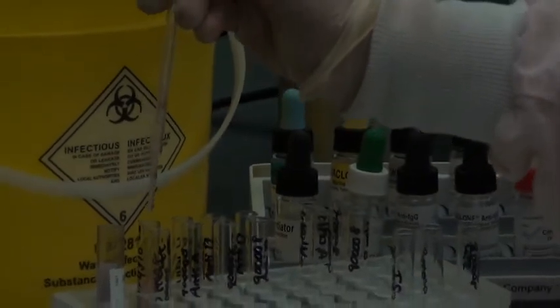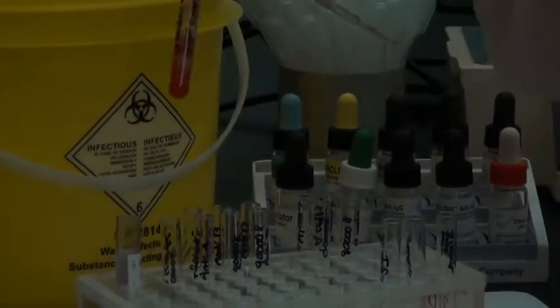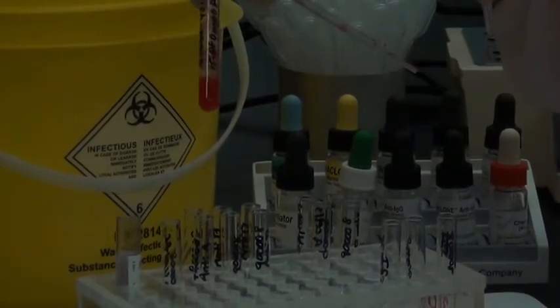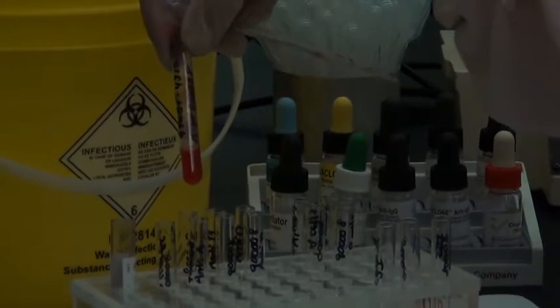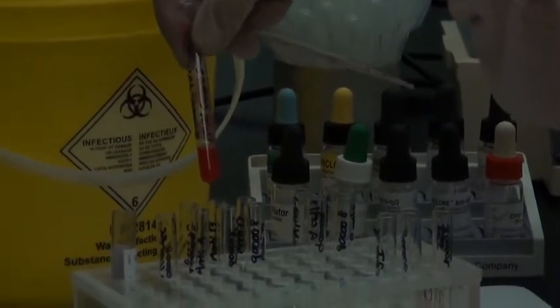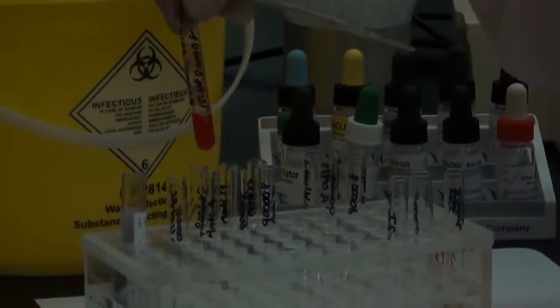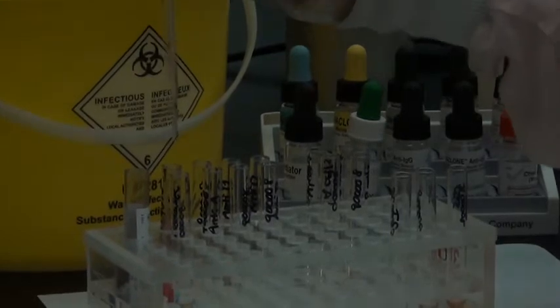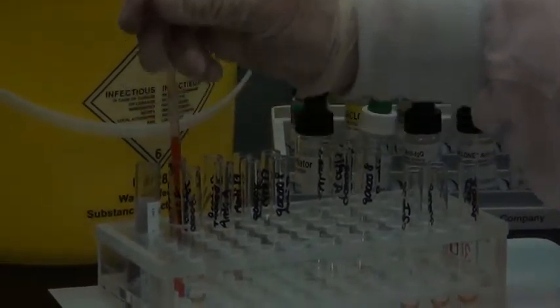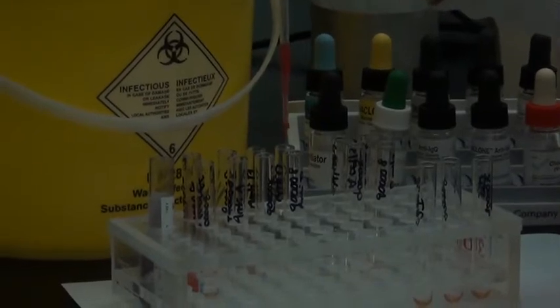So with my pipette, I'm ready to go into this, or take a quick look at my 5%, make sure I feel it's 5%. I just added some cells to saline, and I'm happy with how that looks. If you don't feel it's 5%, add a bit more saline, or if you feel like it's too weak, spin it down and take some saline off. This is called a quick 5%. So I grab the cells and pipette them into the forward grouping, just one of the forward groupings.